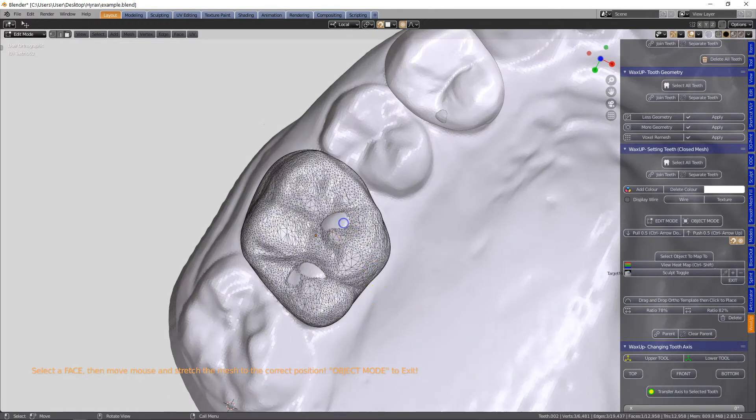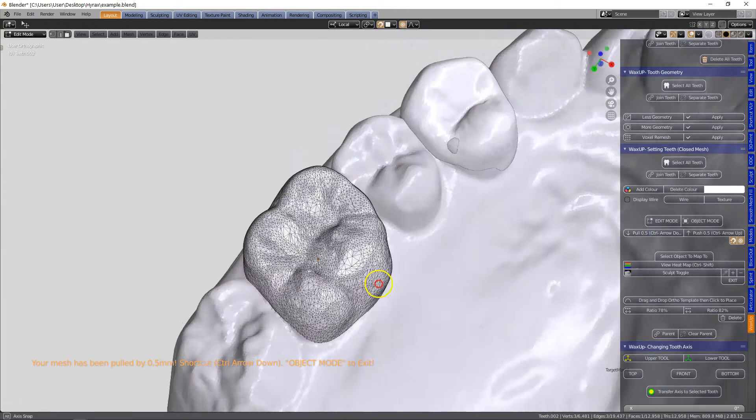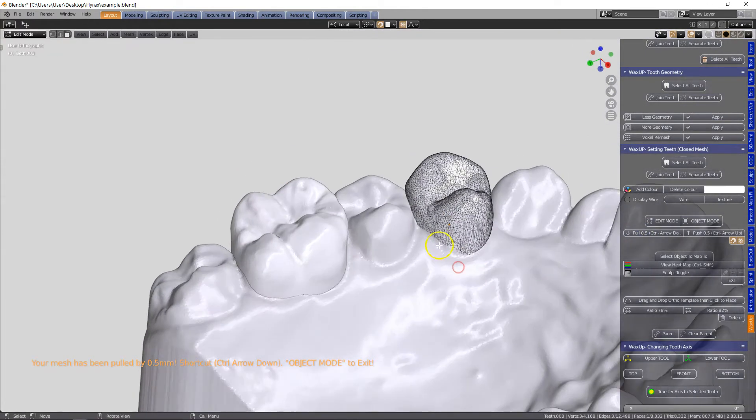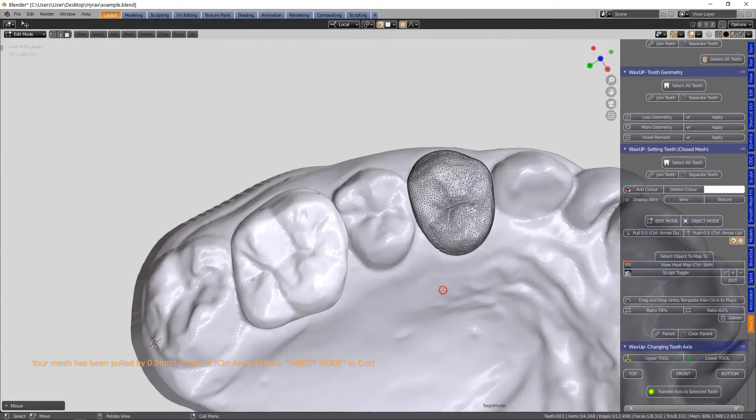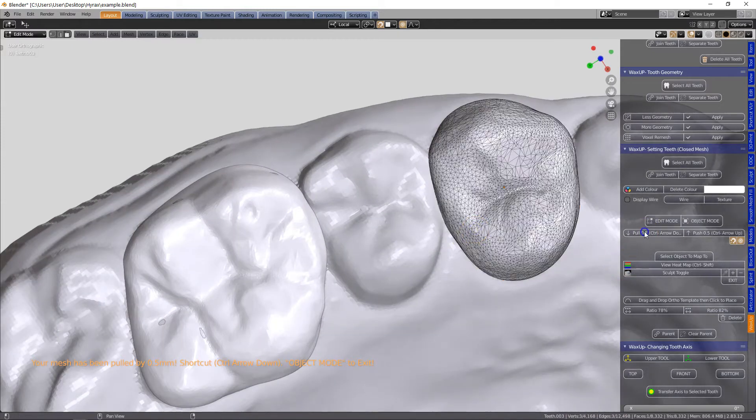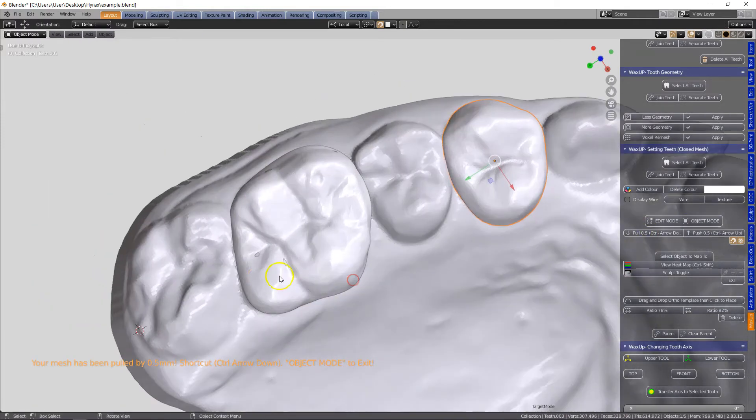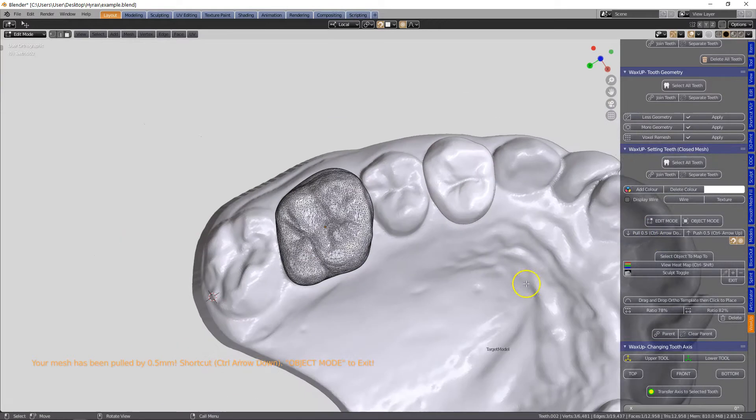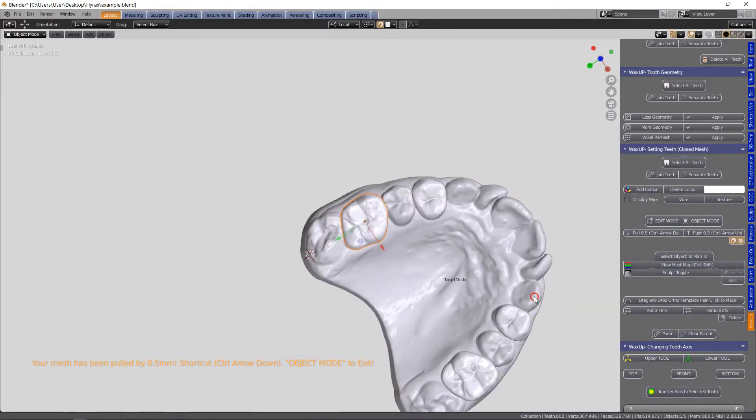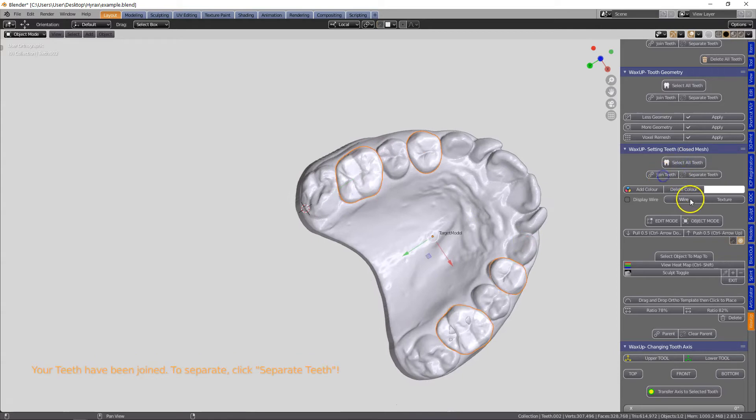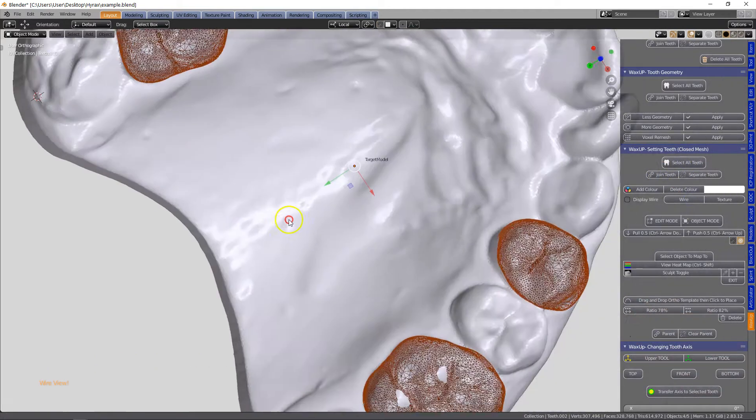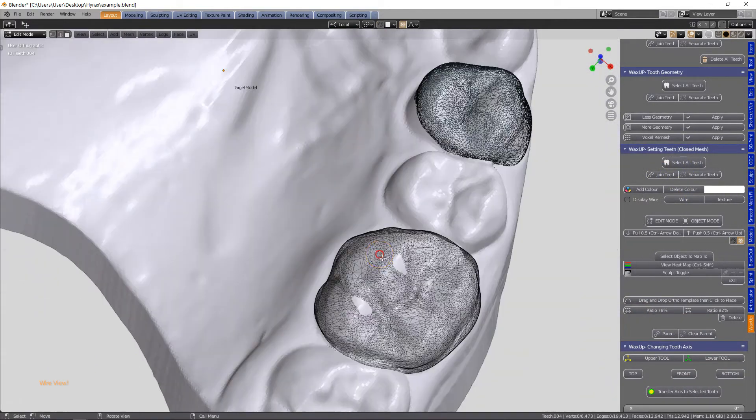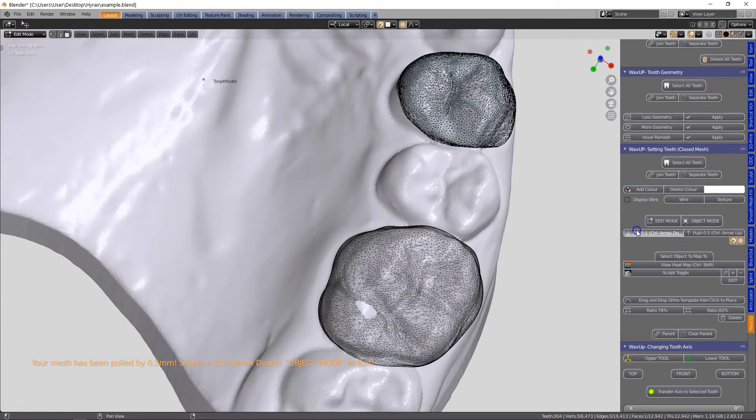We can see that the occlusion is popping through, so this button gives us a potential to pull this out by 0.5 millimeters at a time. We're going to continue doing so for the other side as well, and in the wireframe mode we can actually see through the model and this helps a great deal.